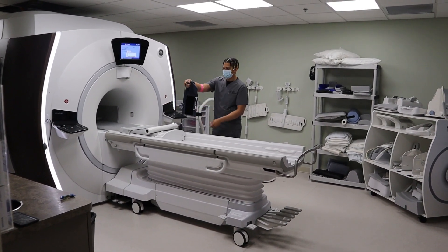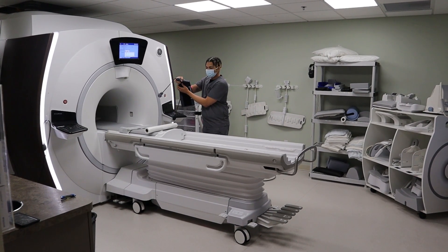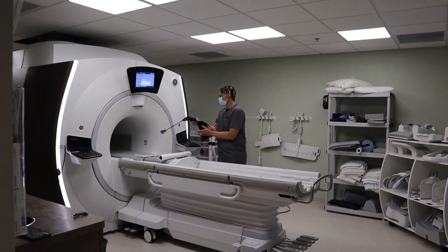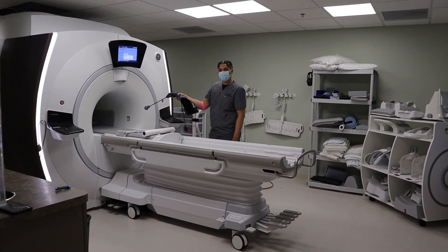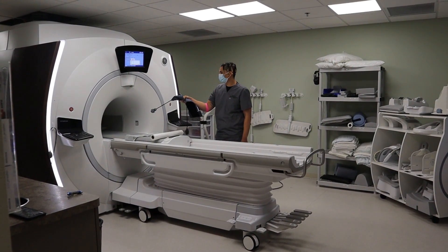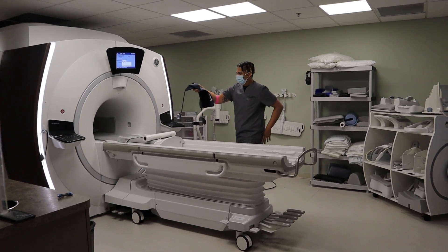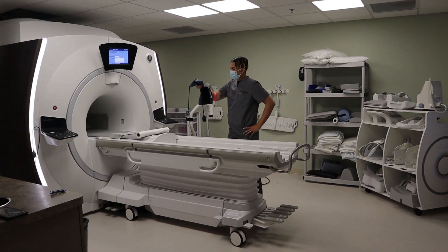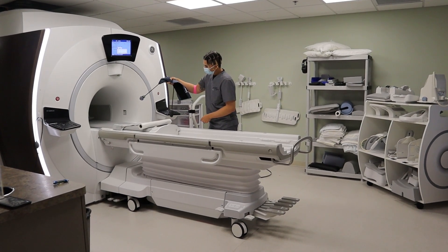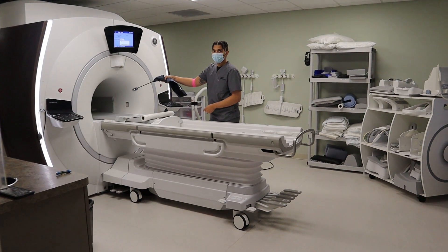Okay, see that — we're good here. Whoa, look at that! I'm walking this like a dog right now. Look at that! See that — I'm good here, but as I start to walk closer... if I let go of this, this thing's gonna fly.